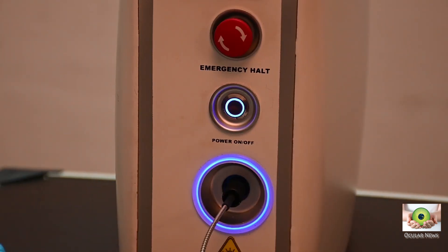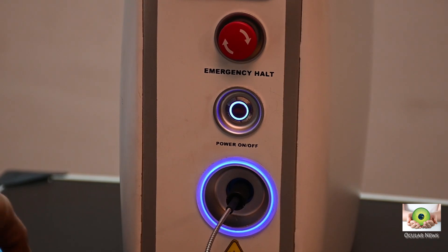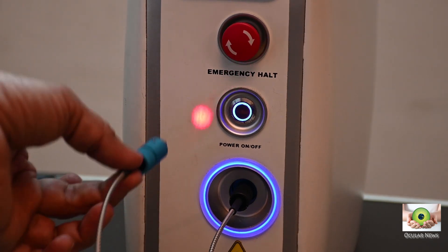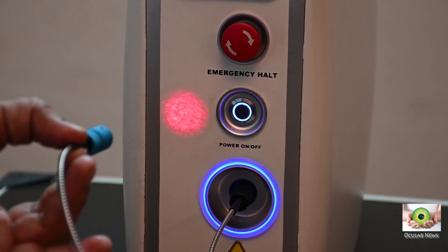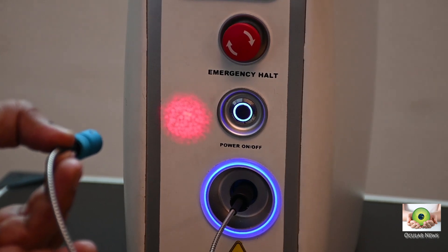Secondly, we compared the laser output from the supplied fiber optic with the fiber optic from SHOT, which is a Zeiss subsidiary, and found the power output and light distribution to be much poorer when compared to the SHOT cable — and that was when comparing an unused supplied cable to a four-year-old SHOT cable. We had to increase the power output from the console by a factor of 1.5 times to get equivalent burns when using the supplied cable.